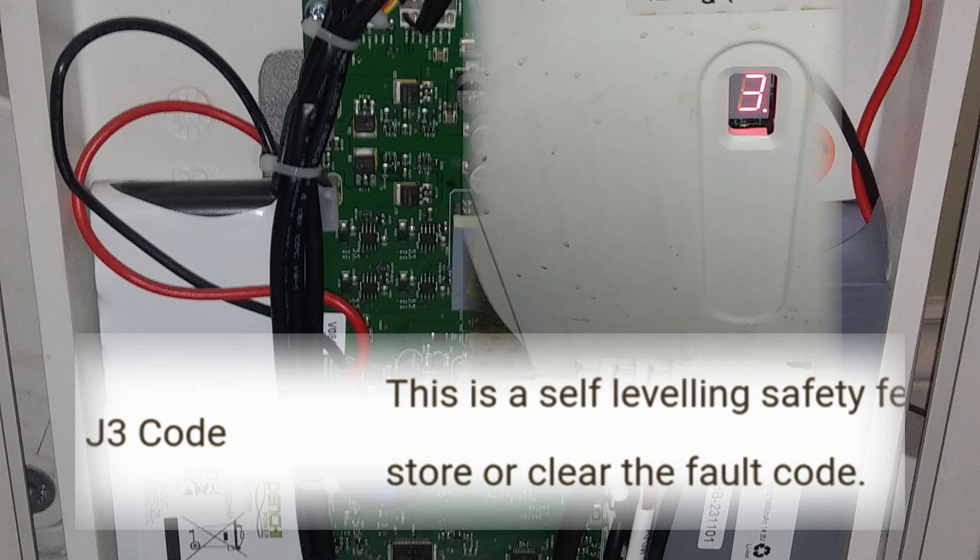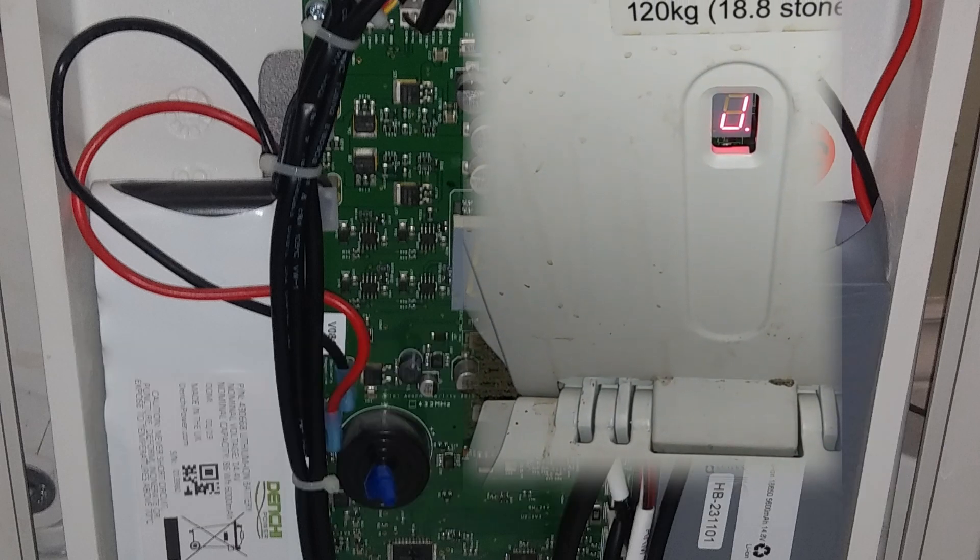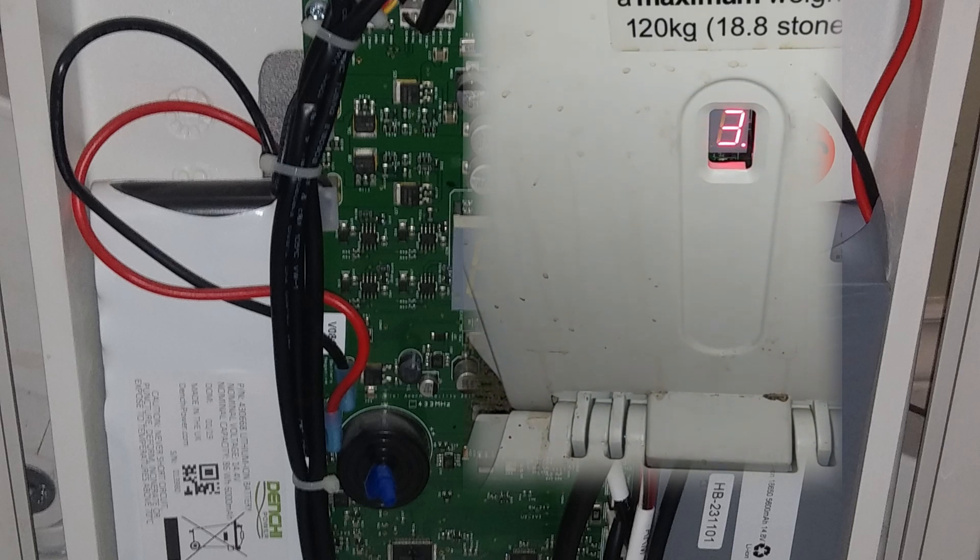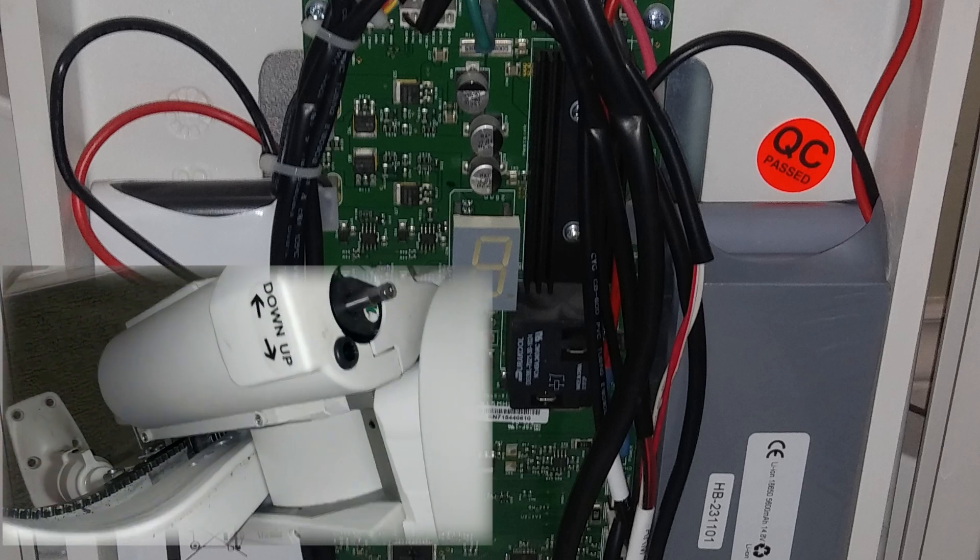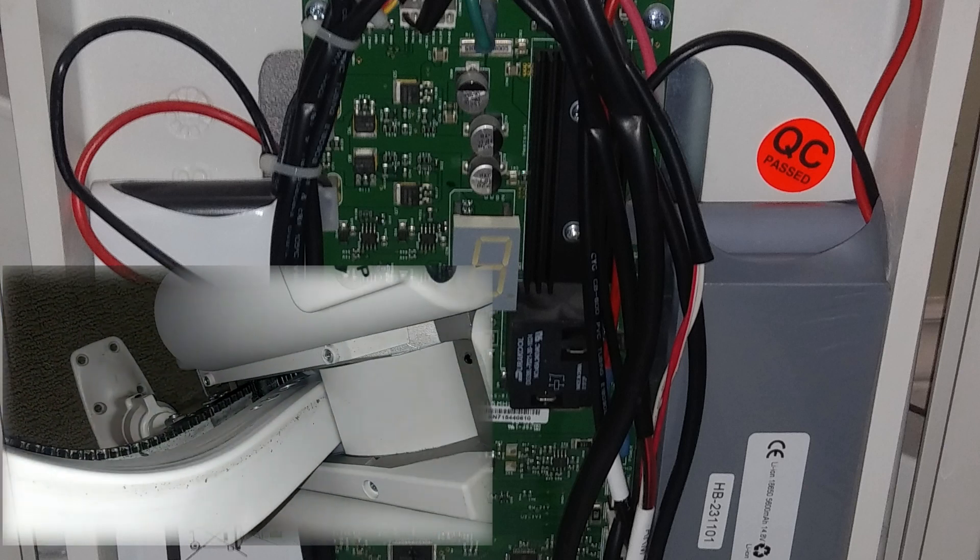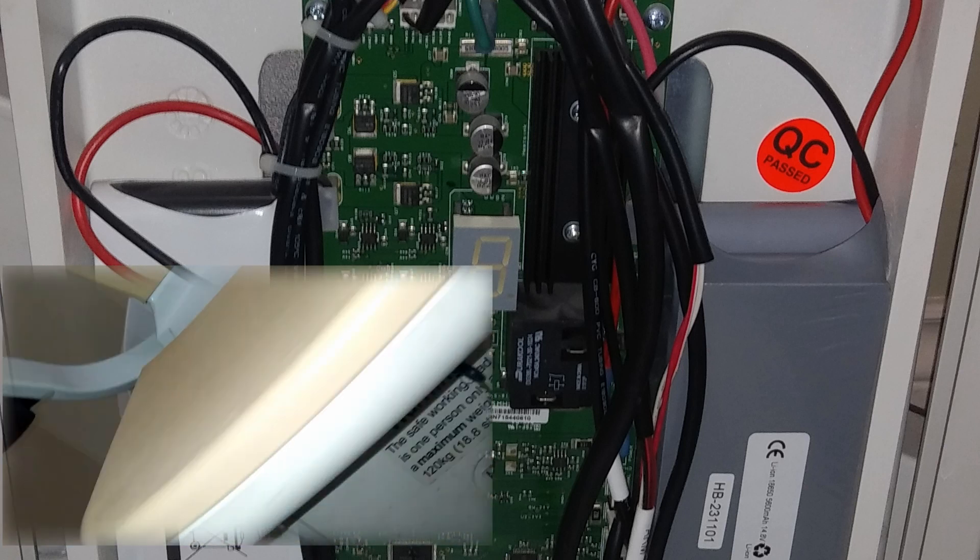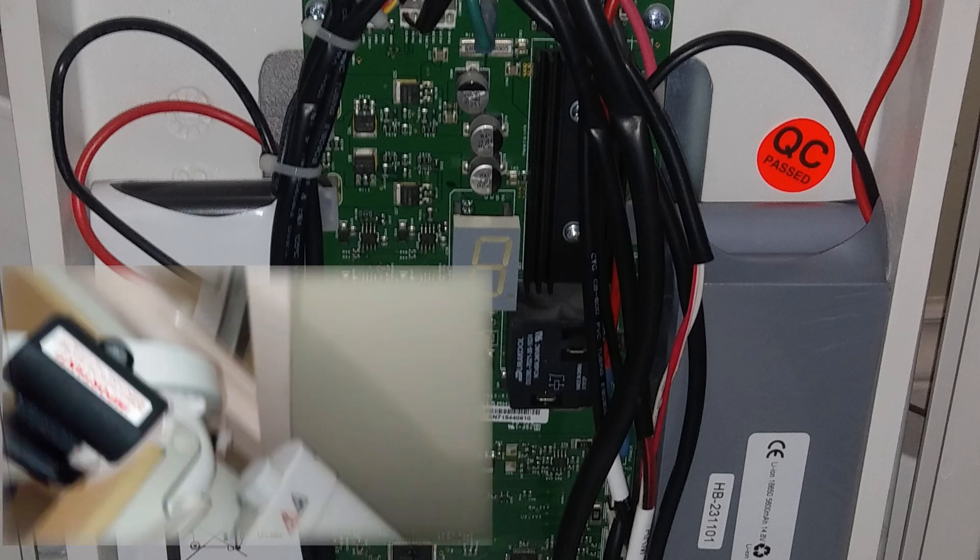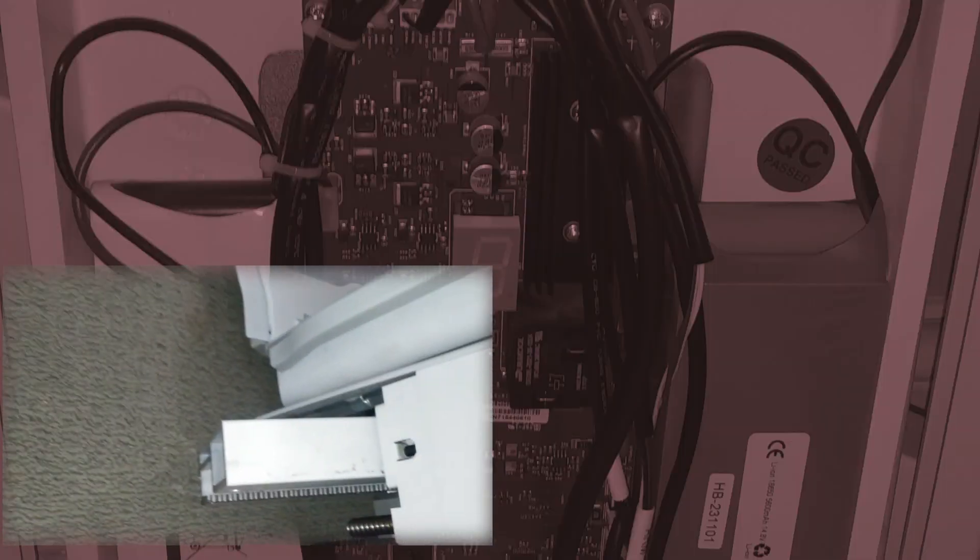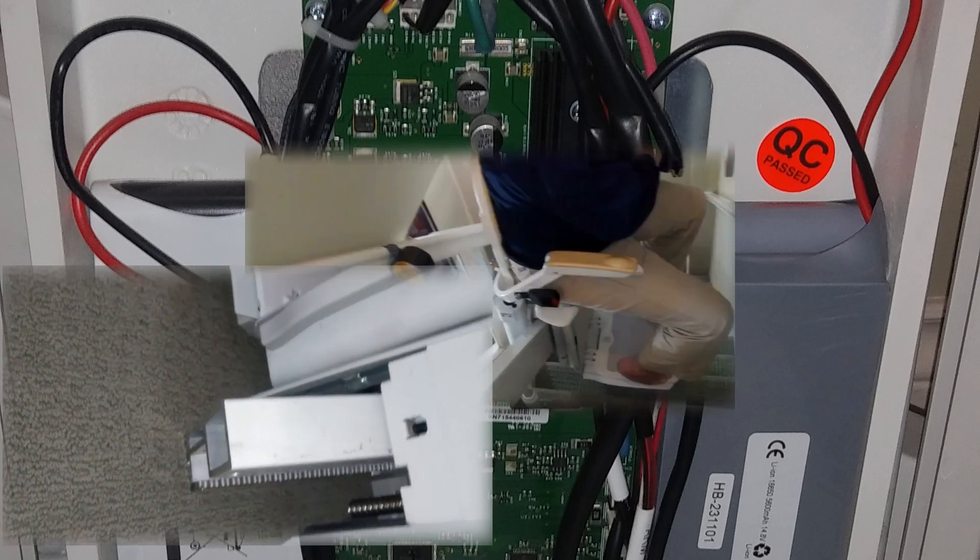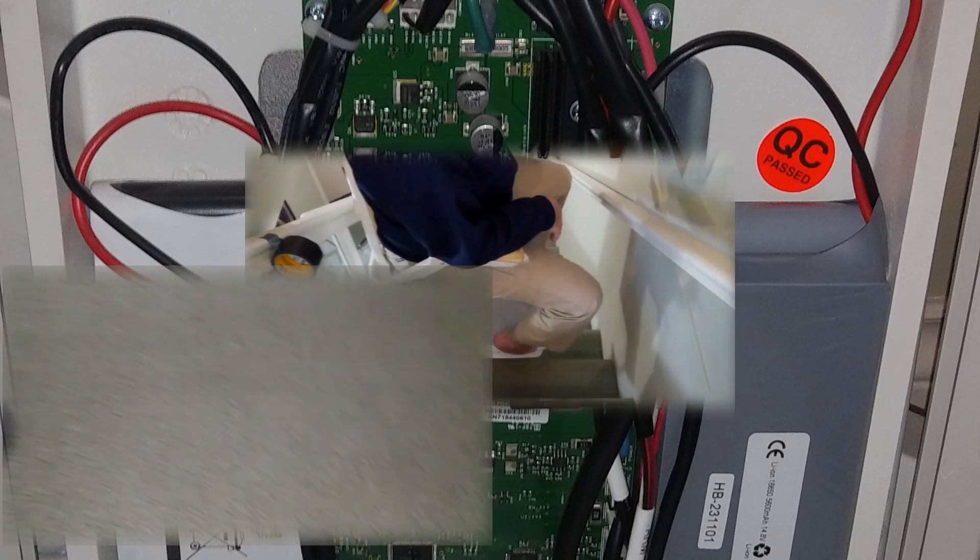But it is a model that came out after 2016. Somewhere around there, they came out with this version, which is actually a fairly nice version. However, when you lose the programming on this one, it gets really funky around the curves and starts to wave back and forth like a dragon when it's going up or down.